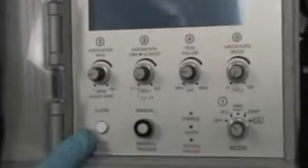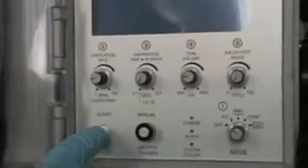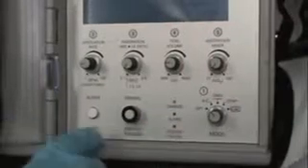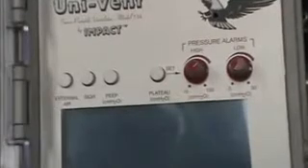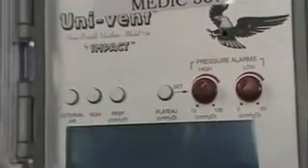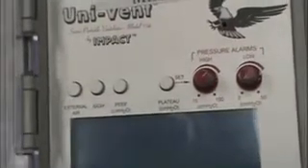Then the alarm button, this is one of the most important buttons on the entire ventilator. If the thing starts to make noise, you can mute the alarm by pushing that button. It doesn't make your alarm go away on the message center, it just makes the sound go away. And if you don't address the problem, the alarm will come back in a pretty short interval of time. The sigh feature, you can program in a sigh if you want to give the patient a vital capacity breath. So if you're worried about them developing atelectasis in their lungs, you can program the sigh to be on, and it will deliver a sigh periodically to make sure you give the patient a full volume.